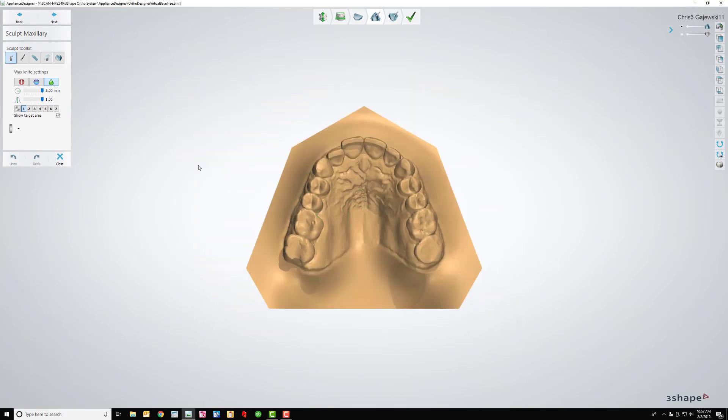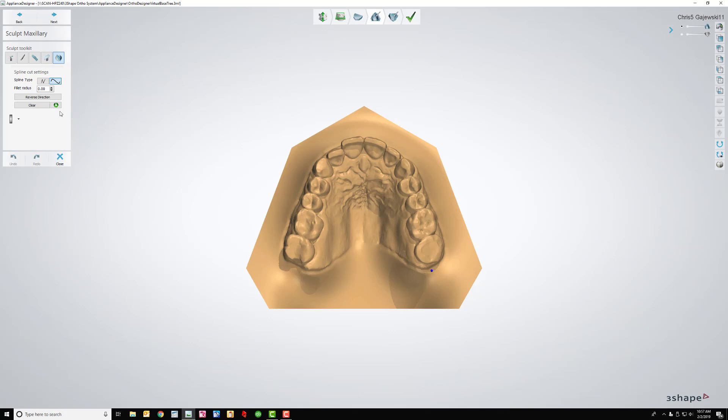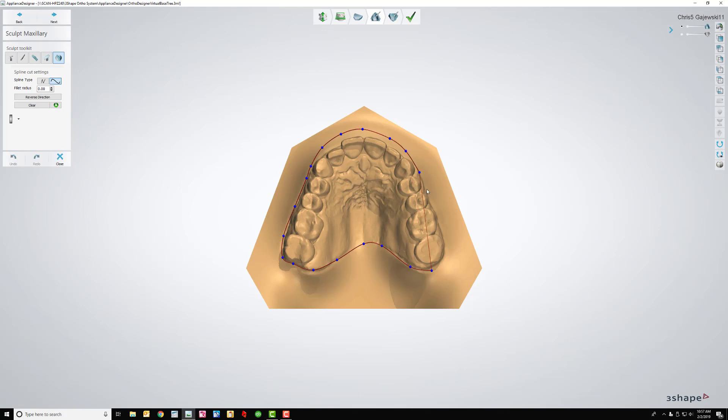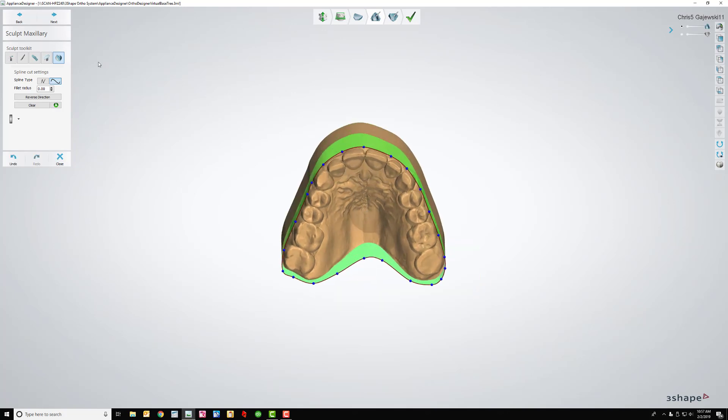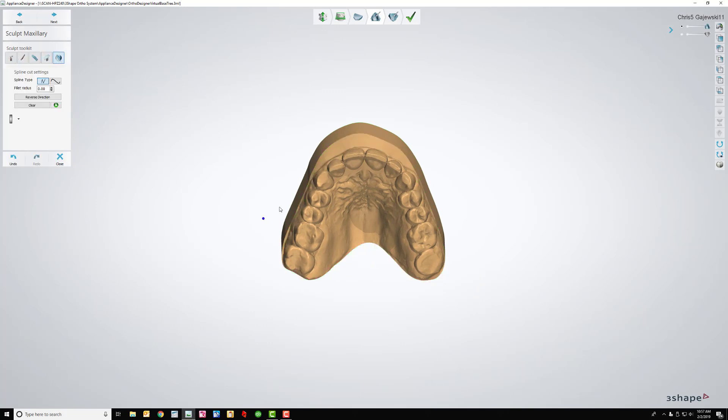And then this will bring me into the sculpt tools. So I just click there, and I've really got to work on the hotkeys things. But the first thing that I do is I come in here to spline cut. I do the curvy thing and I cut down what I want. I try to keep it as close to the gums as possible up until this point. At this point I really don't care because I've got to come back, as you will see in the next step, and cut in a little bit closer. So I have that. It's going to cut, and then I tip it a little bit. I've got to go out, then come back in. And then I do another one, exact same thing, because all that I'm trying to do here is just cut as much away as possible.